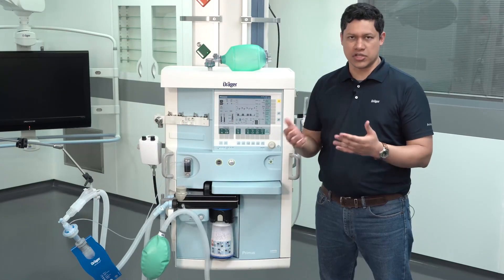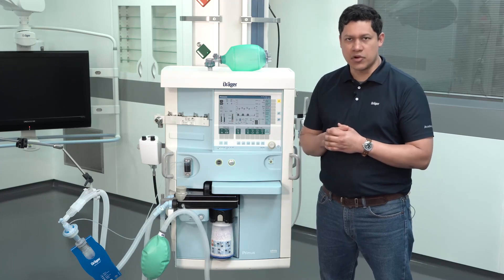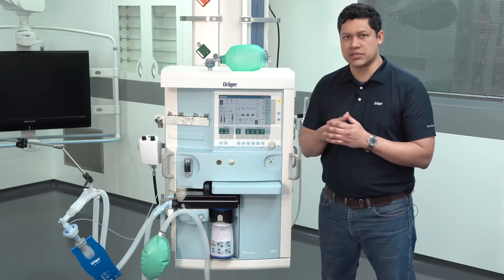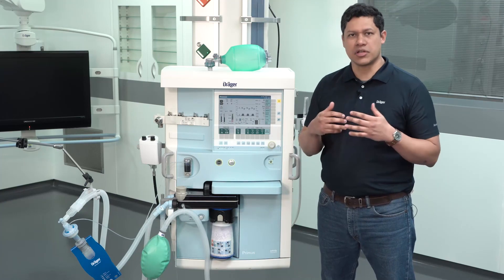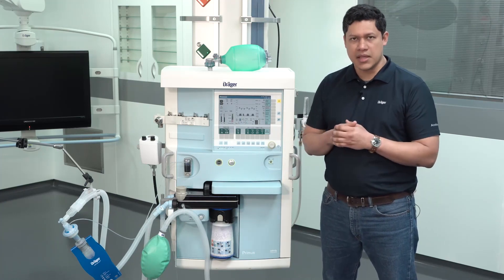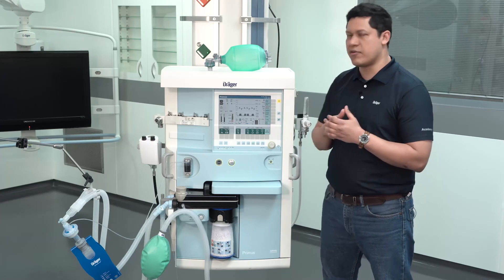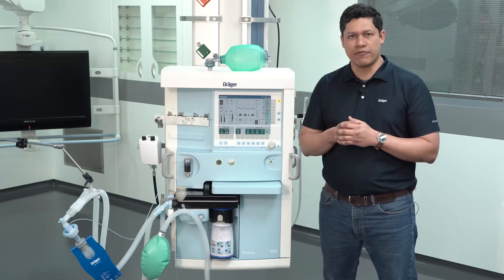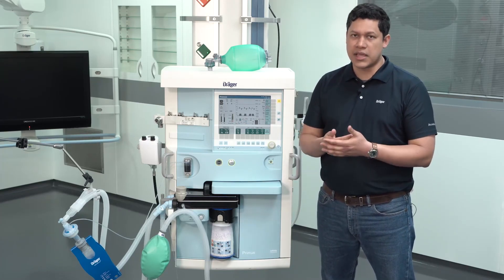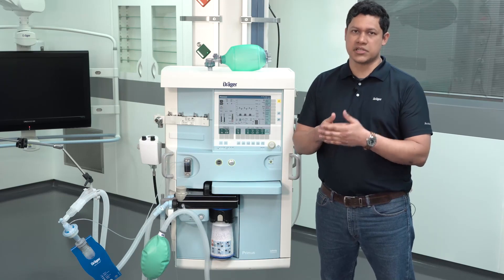To verify the condition of the sodalime, visually monitor that no more than two-thirds of its content has turned purple and that inspiratory CO2 has not gone above 5 mmHg. If that is not the case, be prepared to exchange the sodalime.